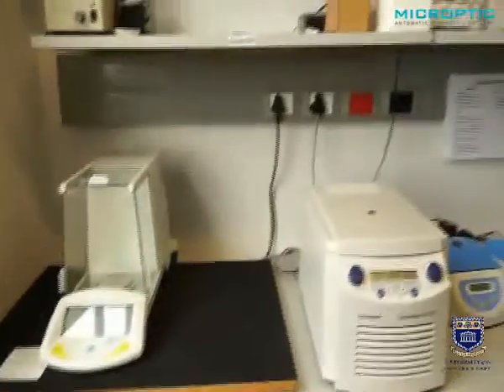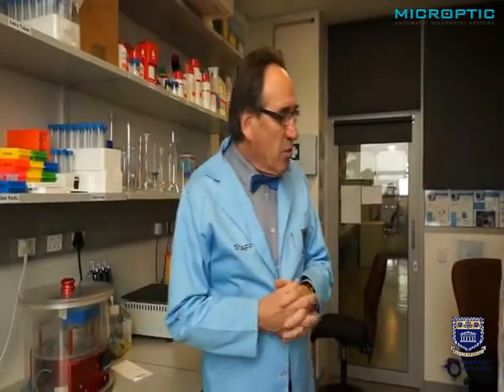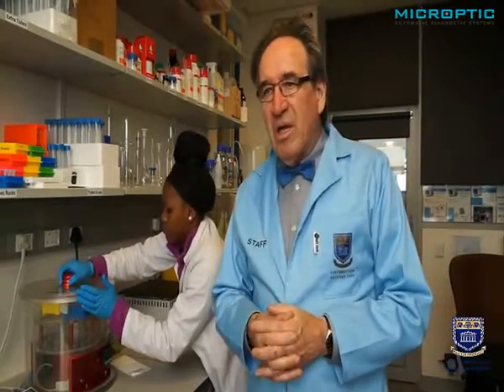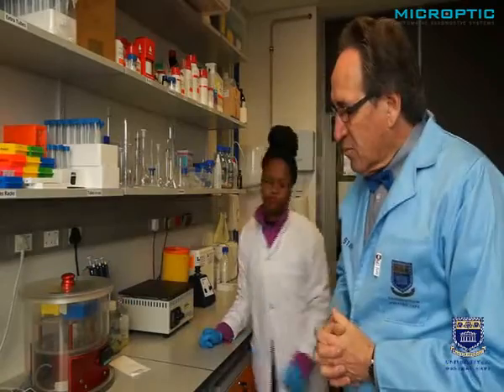So you can see how much I emphasize temperature control. You cannot do without it. You must heat your pipette tips, you must heat your tubes, you must heat the slides. All of it must be at 37 degrees. Sperm is very sensitive to temperature, and there is no compromise to that. It doesn't help that you heat your slide at 37 degrees, but you use a tip which is still at room temperature. That creates a temperature shock, and it is not acceptable.